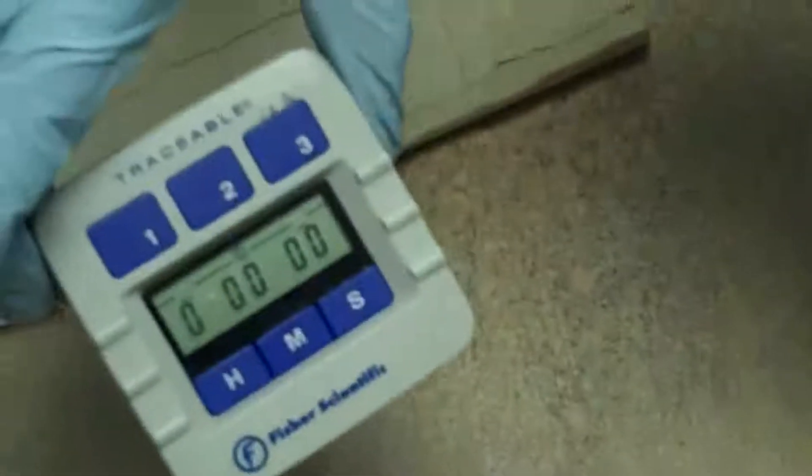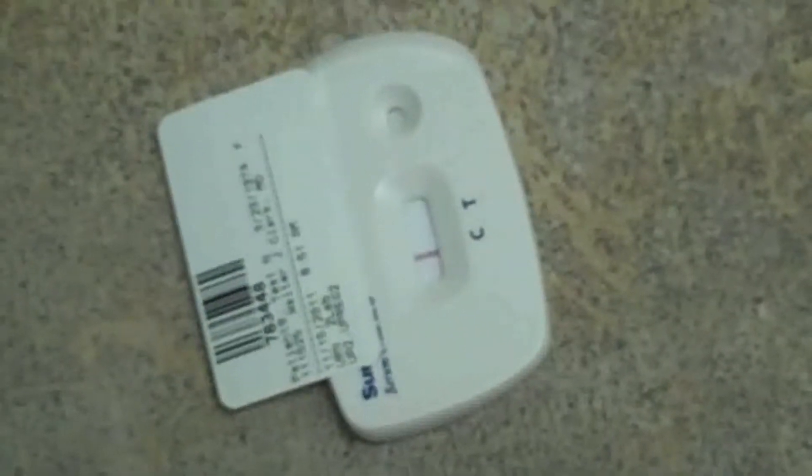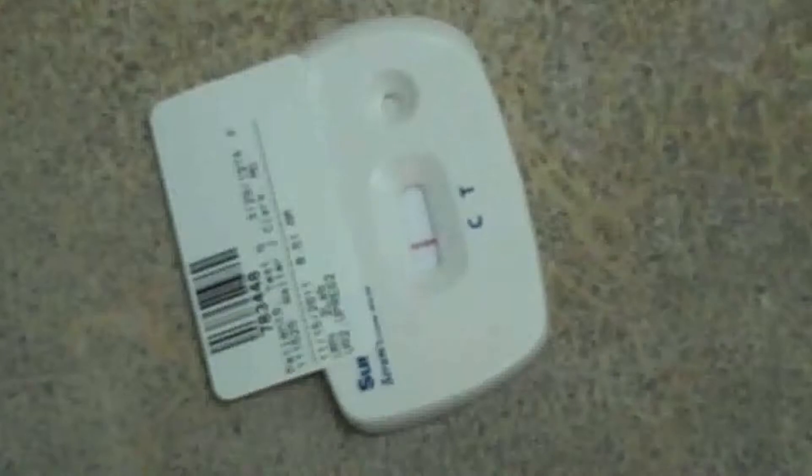The timer has reached three minutes. We must read our test at exactly three minutes — not three minutes and two seconds, but three minutes exactly. This patient test has a line at the C and no line at the T. This patient test result is negative.